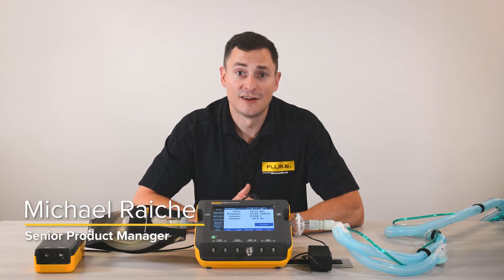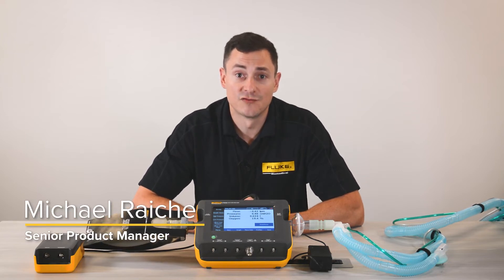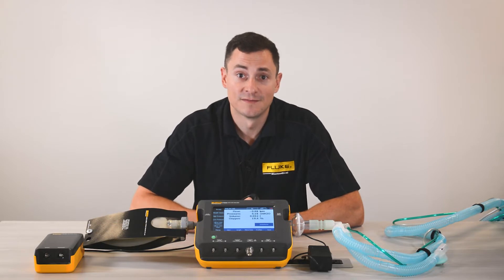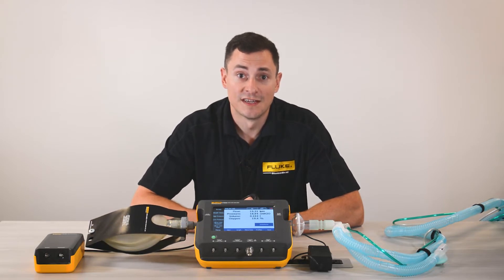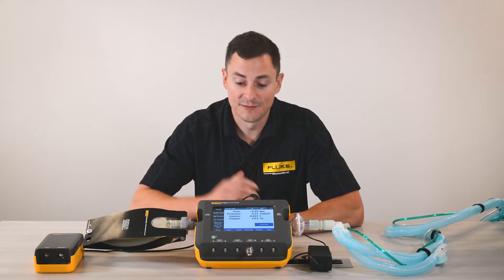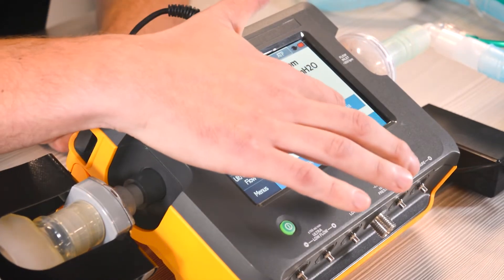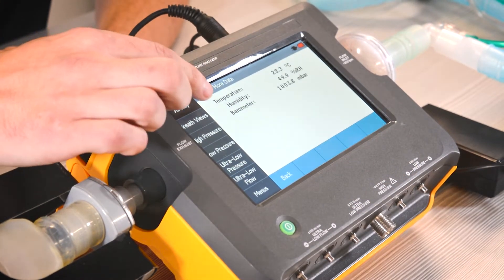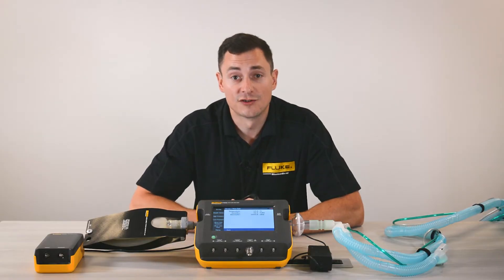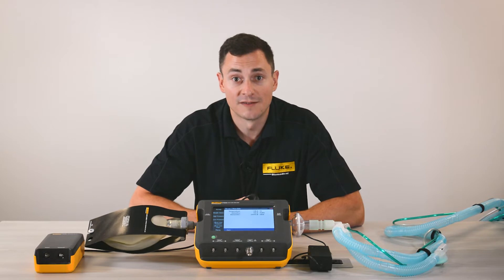My name is Michael Raich and I'm here to talk to you about what devices you can replace if you switch to a VT gas flow analyzer. The first thing I want to touch on is the fact that you can replace your atmospheric conditions meter. If you go to airway and more data, you can see that we can measure temperature, pressure, and humidity. The VT will do all your compensations for you so you don't have to do any more math.